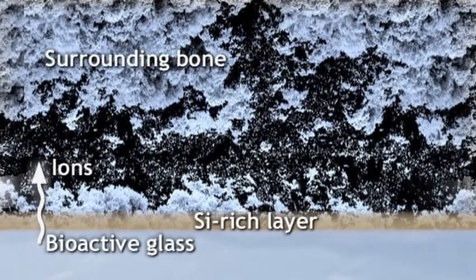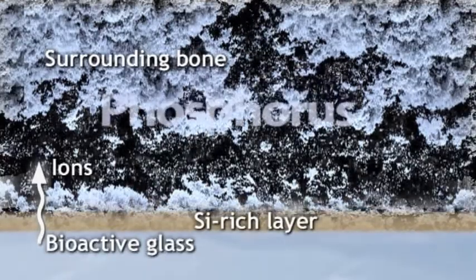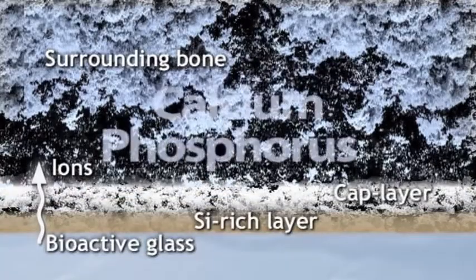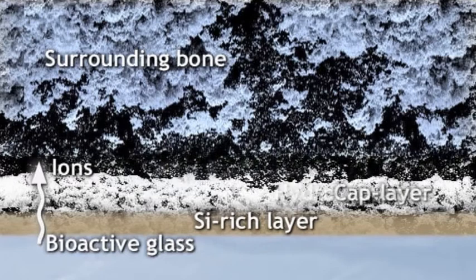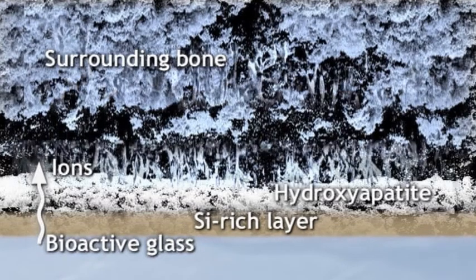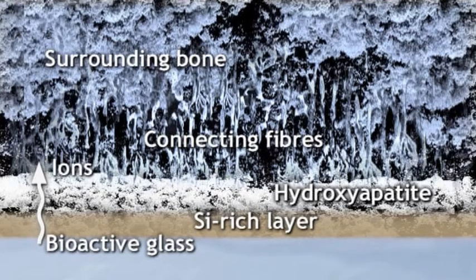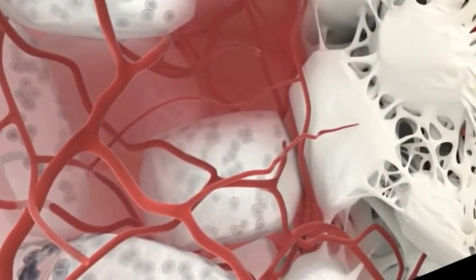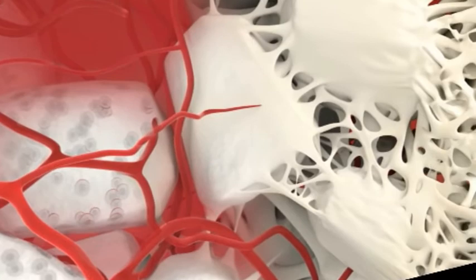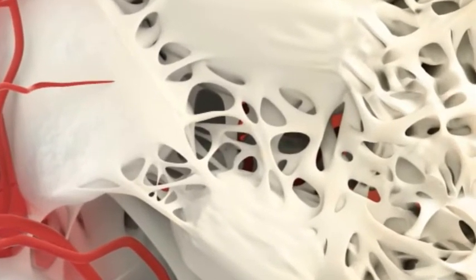Within minutes, sodium, calcium, phosphorus and silicon are dissolving into the surrounding fluid. The hydrated silica groups at the glass surface condense and re-polymerise to establish a silica-rich layer. Calcium and phosphate groups from the glass and the solution start to accumulate to form a calcium phosphate layer above the silica-rich layer. This calcium phosphate layer then crystallizes into natural hydroxyapatite, providing a favorable surface for osteoblasts and their production of collagen fibers and subsequent mineralizing of the osteoid matrix.